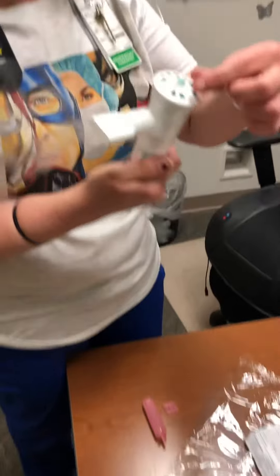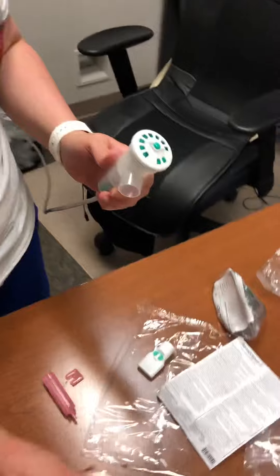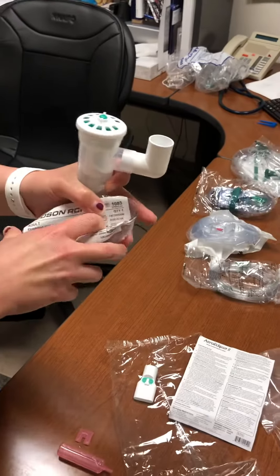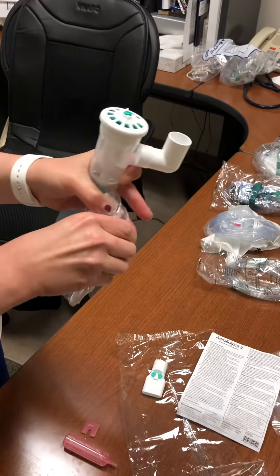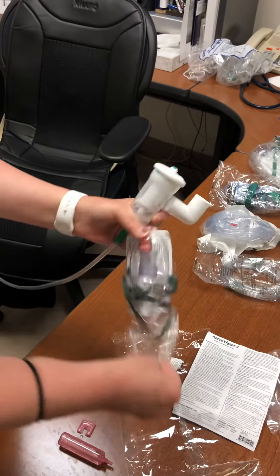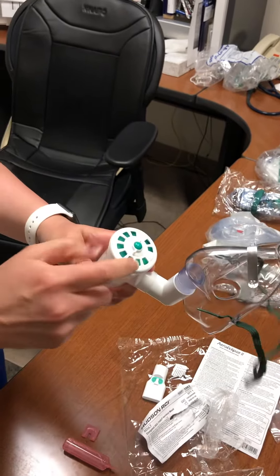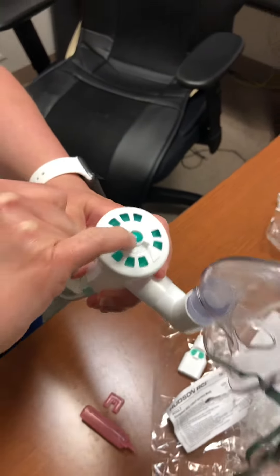If you need to do a mask, you're going to take this piece off and put the elbow piece on — it will only fit one way. Open your mask and the mask is going to go right in here. Then you're going to do the same thing on the top and turn it so it nebulizes, so the ball goes down.